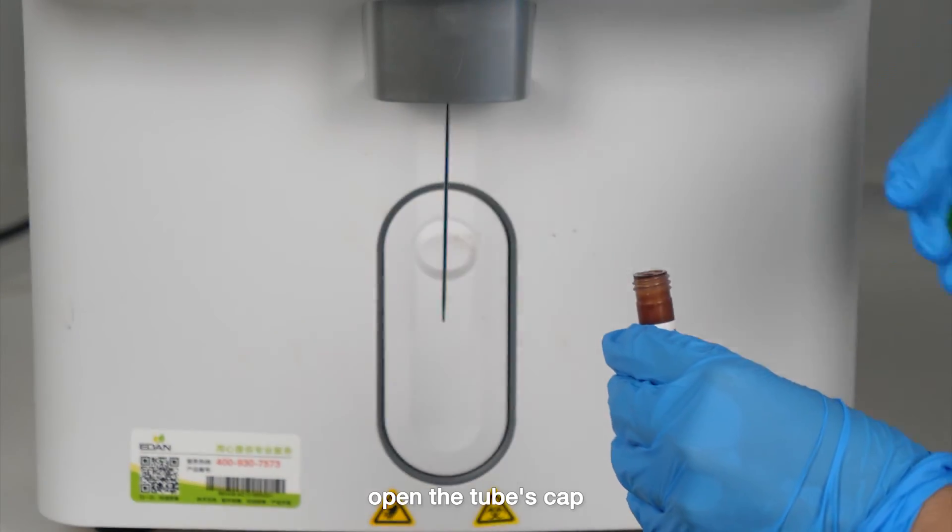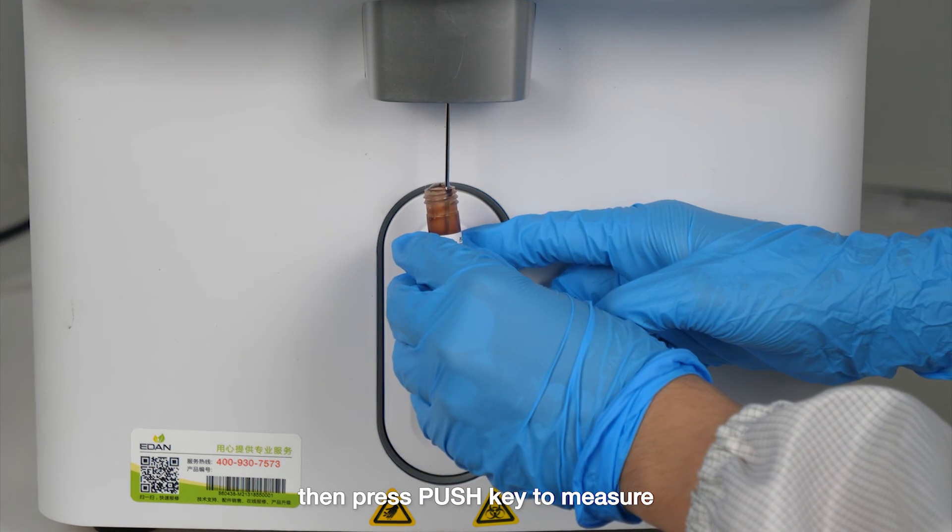Open the tube's cap, put it under the sample probe, then press push key to measure.